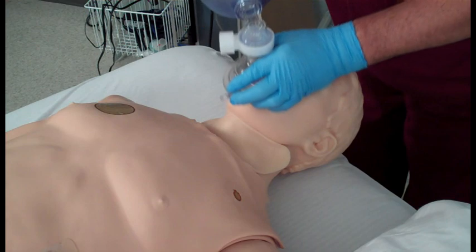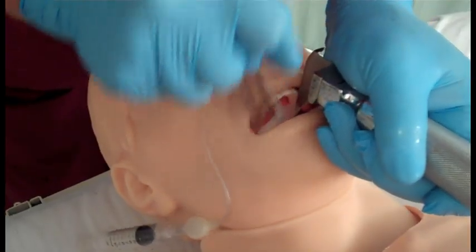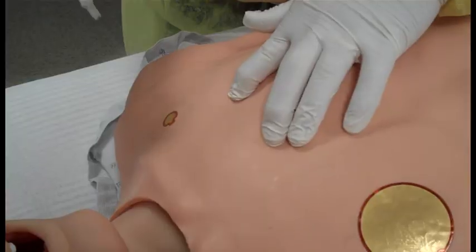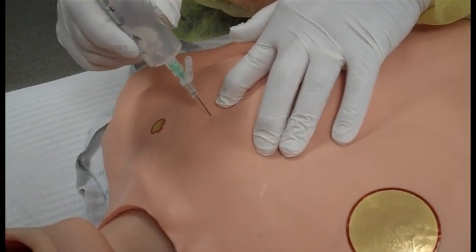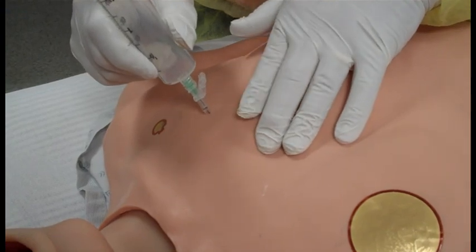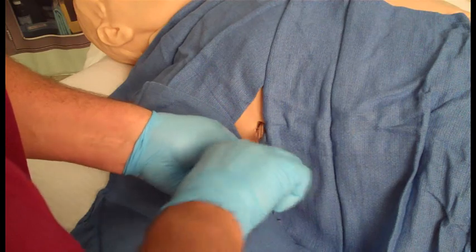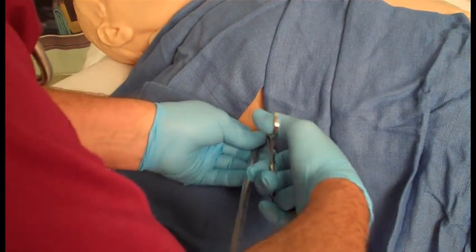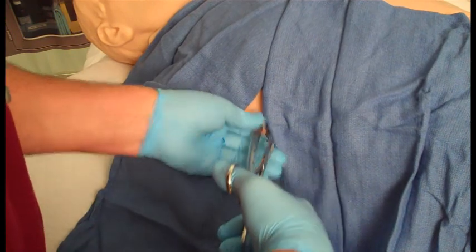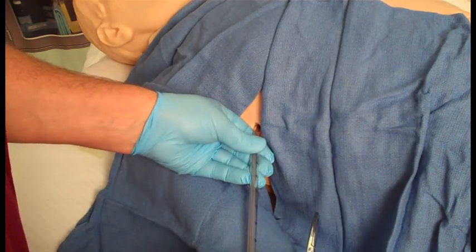The airway contains nominal landmarks permitting either BVM or intubation exercises, including the use of an LMA. In the presence of a pneumothorax, you can perform bilateral needle decompressions at the second intercostal space, and there's bilateral chest tube access available. When placing a chest tube, you will not have to palpate for landmarks and make an incision, but you should follow the process of maintaining a sterile field, placing and securing the tube, and attaching it to a chest drainage system.